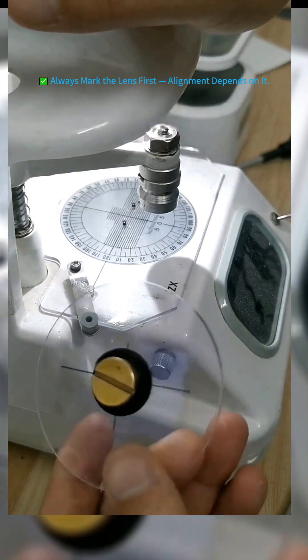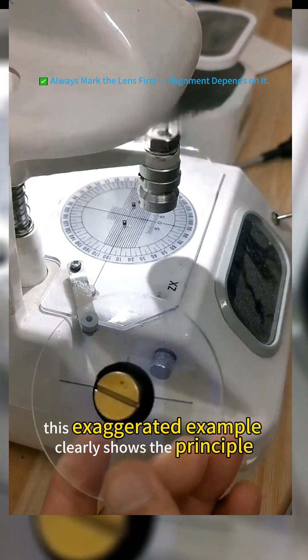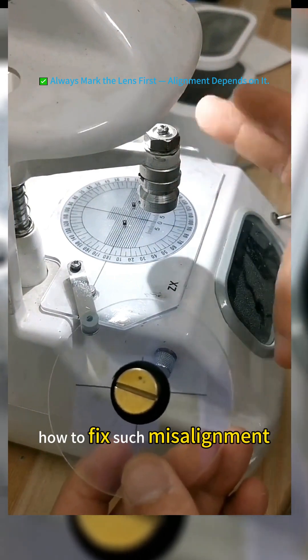Notice the difference? This exaggerated example clearly shows the principle. How to fix such misalignment.